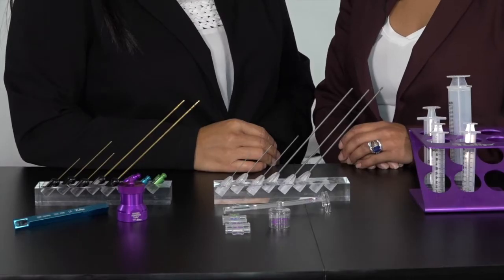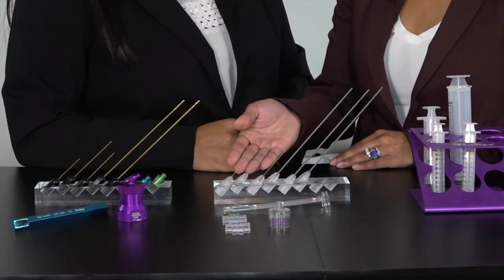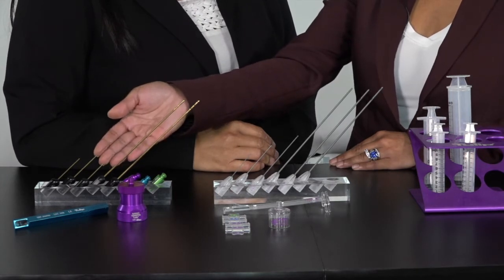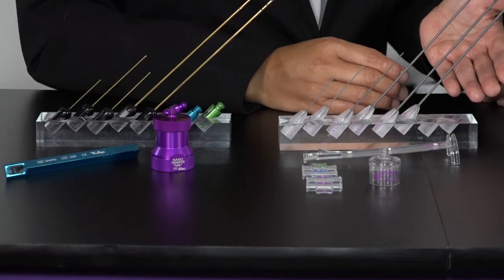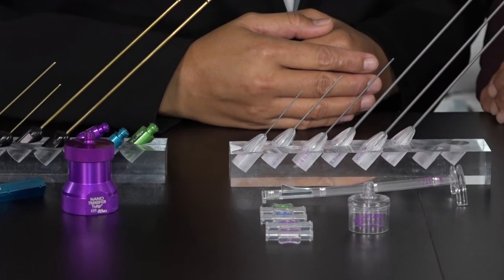What we have for you today is the single-use Soft Touch Miller MicroFat and Generation 2 Nano Transfer Kit. We also have the reusable Tulip Gold Standard Miller and Nano Transfer Generation 1 set. With either the single-use kit or the Tulip Gold Standard set, you can offer your patients MicroFat or Tulip True NanoFat treatment to achieve non-surgical facial rejuvenation and skin tightening, all in one office-based setting.